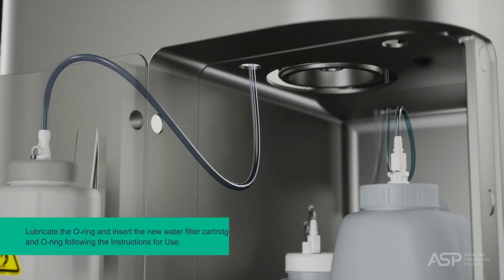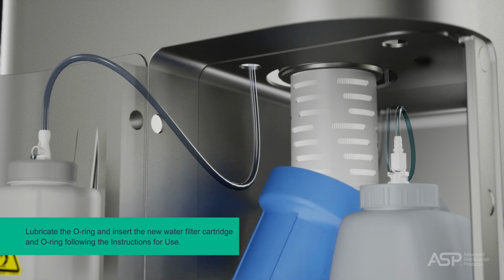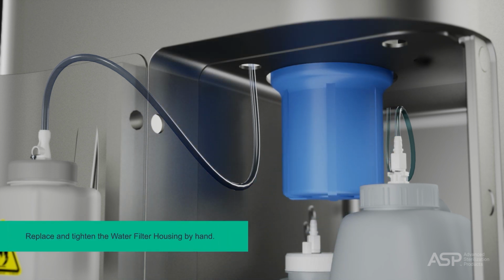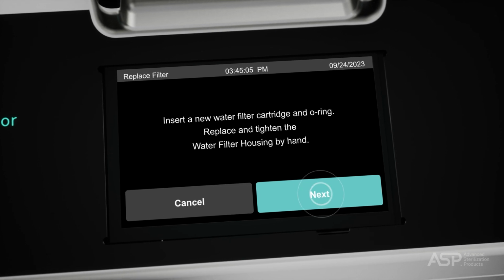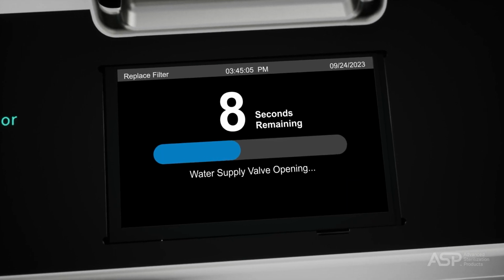Lubricate the O-ring and insert the new water filter cartridge and O-ring following the instructions for use provided with the filter cartridge packaging. Next, replace and tighten the water filter housing by hand, then tap the Next button. A progress indicator bar is displayed until the process is complete.